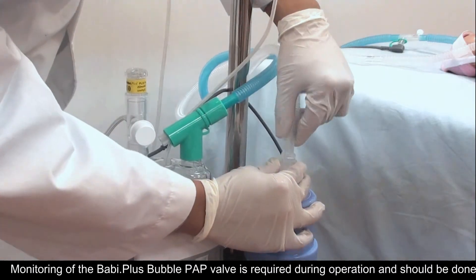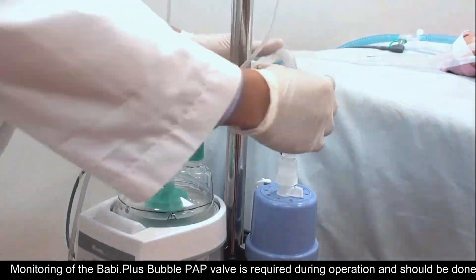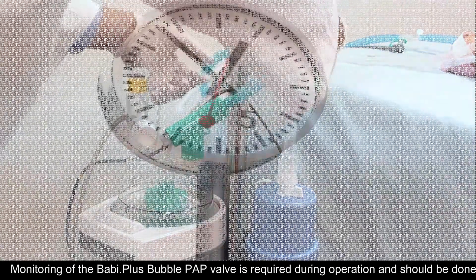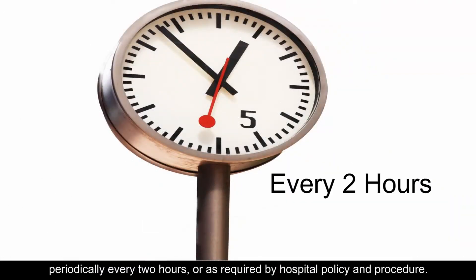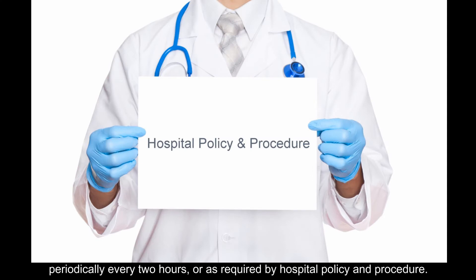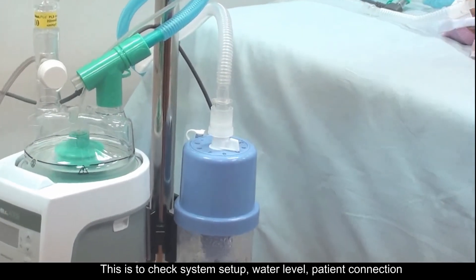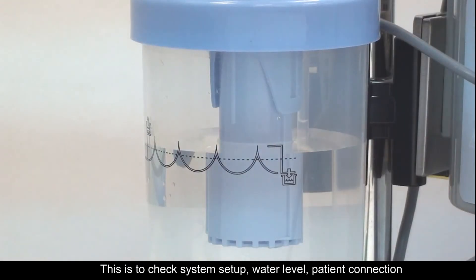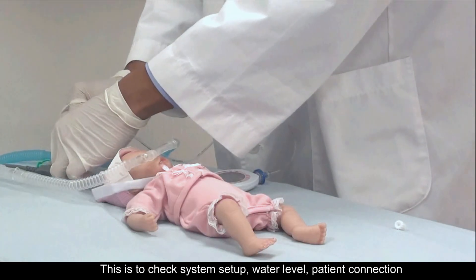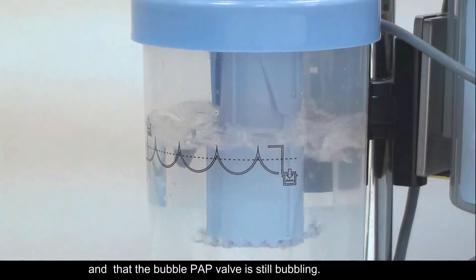Monitoring of the Baby Plus Bubble PAP valve is required during operation and should be done periodically every two hours, or as required by hospital policy and procedure. This is to check system setup, water level, patient connection, and that the bubble PAP valve is still bubbling.